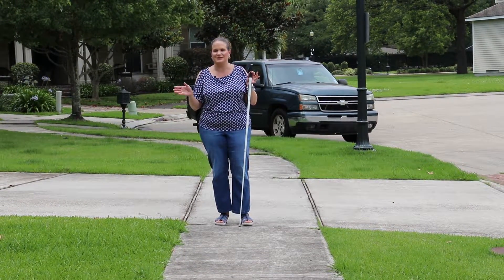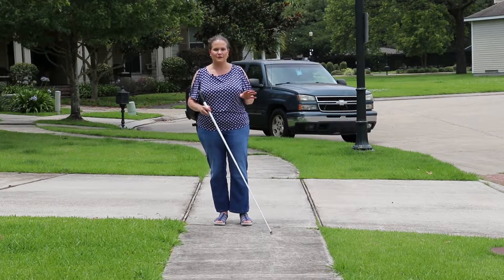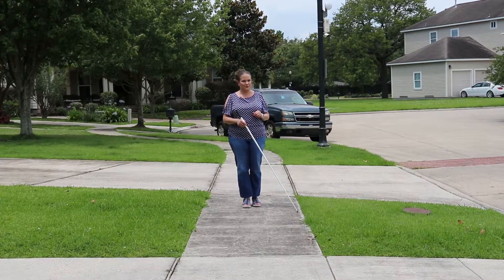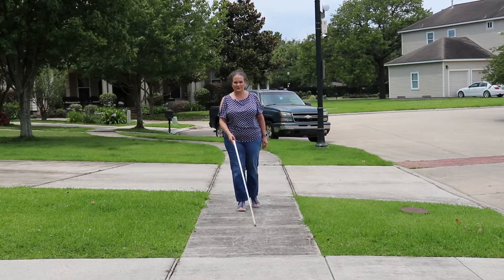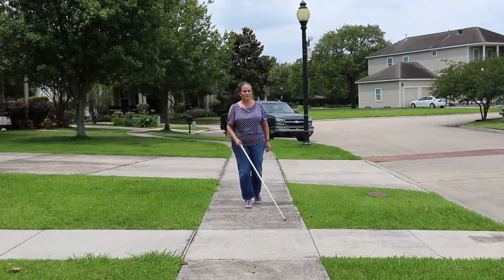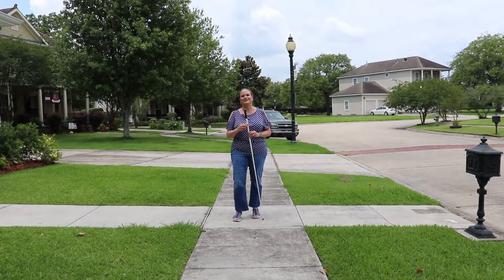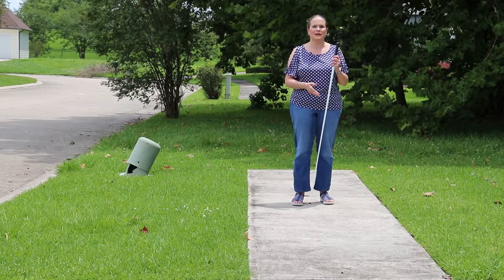This is where the Orientation and Mobility Specialist really shines. There are many different ways you can use the cane depending on how familiar you are with your environment. For example, just holding the cane in a diagonal pattern in front of you can help you follow a shoreline if you're in familiar territory. But if you're in unfamiliar territory, you're going to want to swing the cane — you may do this by using constant contact, a touch and drag method, or two-point touch, and so on.